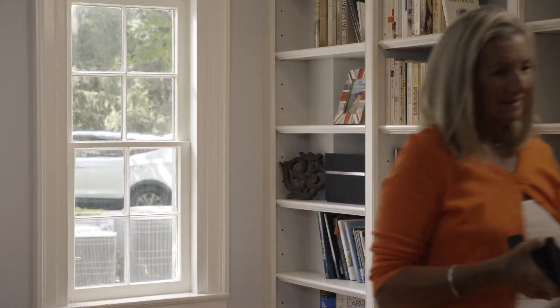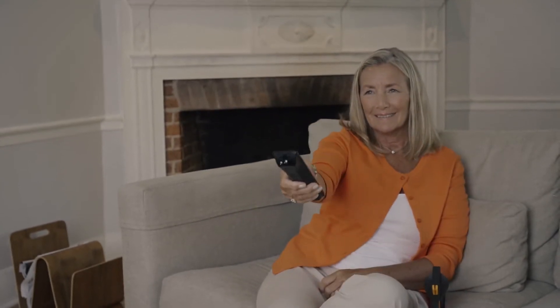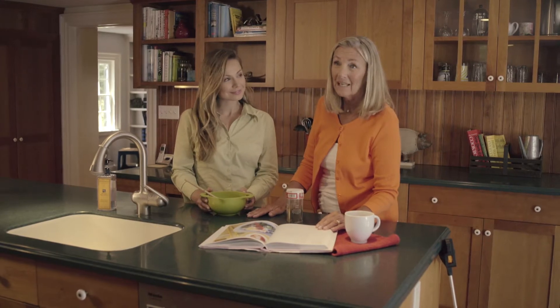With this reacher, I don't have to rely on anyone to do simple tasks around the house. And most importantly, I don't have to worry about the risk of Mom hurting herself if she uses a step stool or reaches for something that's a little too high. I have to keep myself safe and healthy, especially as I'm getting older. And being independent while doing that is really important to me.